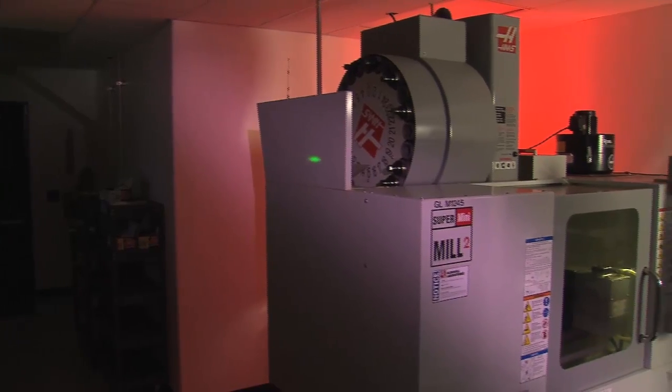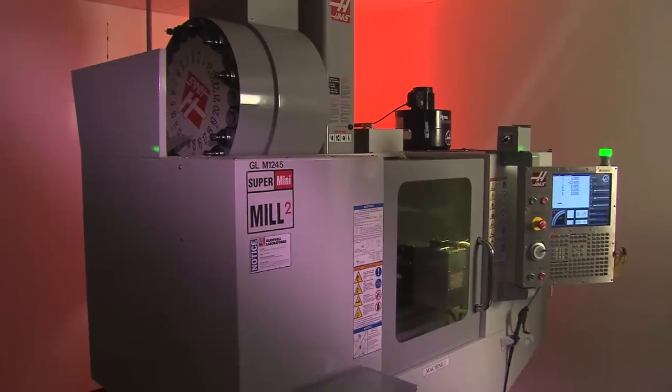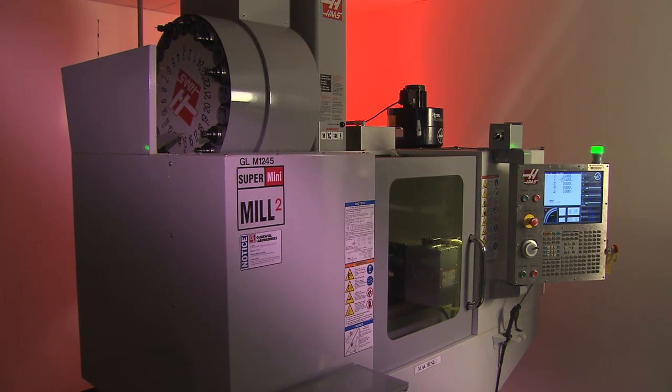For a laboratory transitioning to CAD CAM production, one of the most important decisions to be made is the purchase of a milling system.